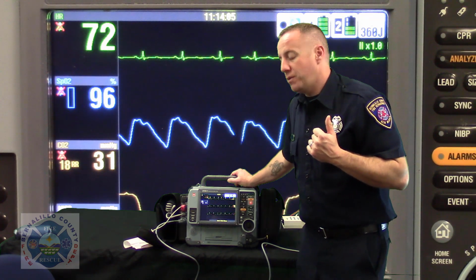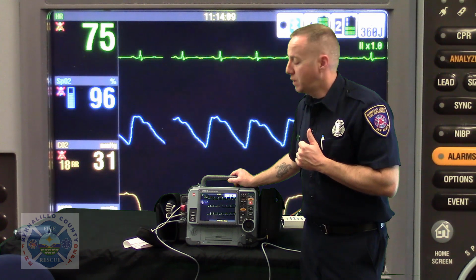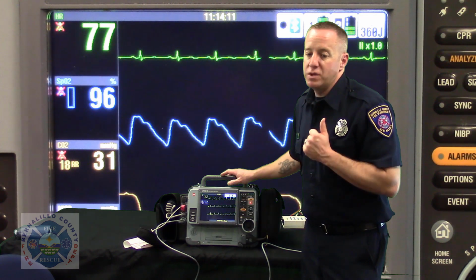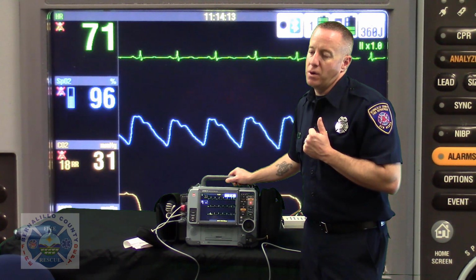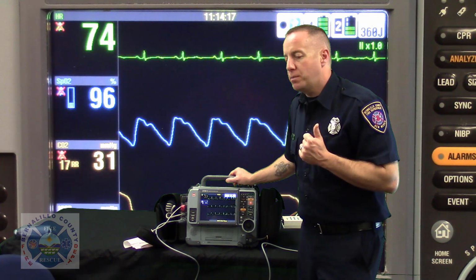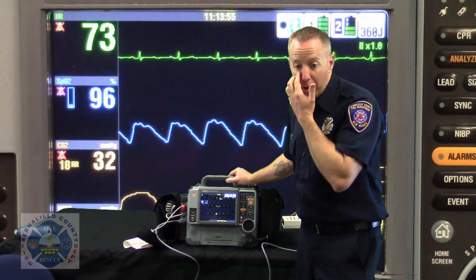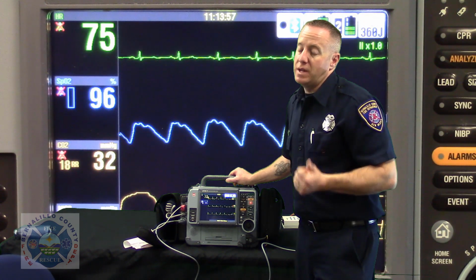It's a 40-year-old male with acute coronary syndrome. I'm transmitting the EKG to you now. Let me know when you get it. And they've received the 12-lead before I disconnect that phone call. We haven't even left the scene yet. They're ready to activate the cath lab, call the people in that they need to call in, and the patient has a very, very good outcome just by some simple data entry steps.